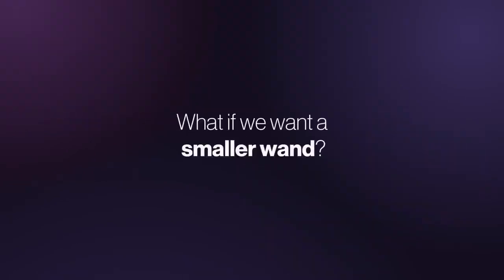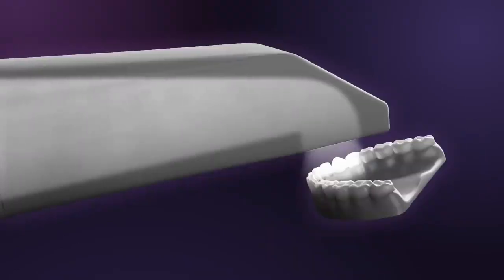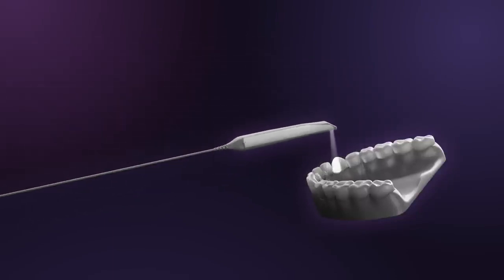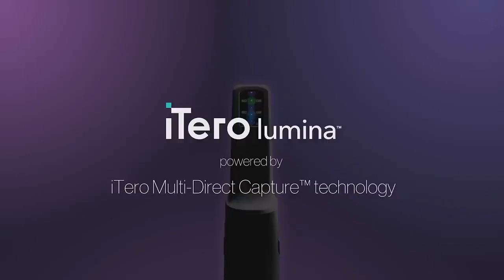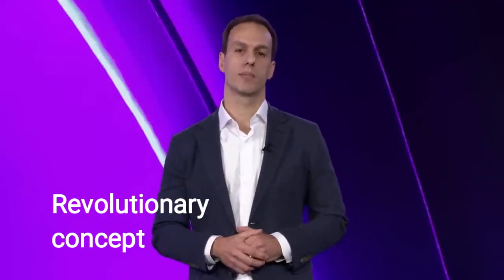On the other hand, if you want a very small wand, the field of capture will shrink alongside, forcing you to compromise on the performance and accuracy of the scan. Let me introduce you to the technology that powers the new iTero Lumina scanner. iTero multi-direct capture technology, or MDC, leaps over previous limitations with a completely revolutionary concept.